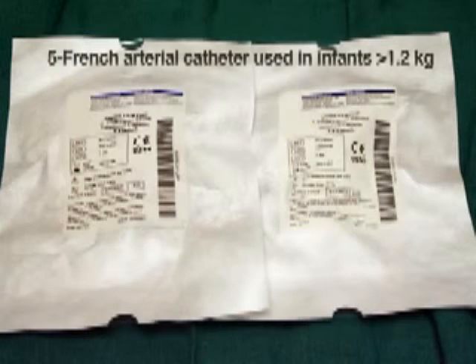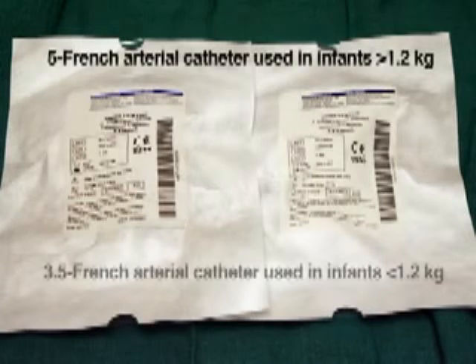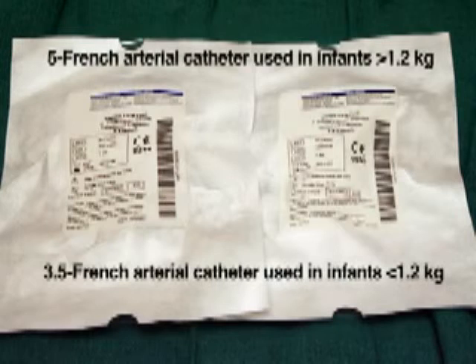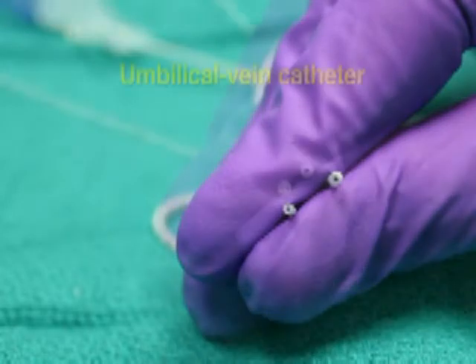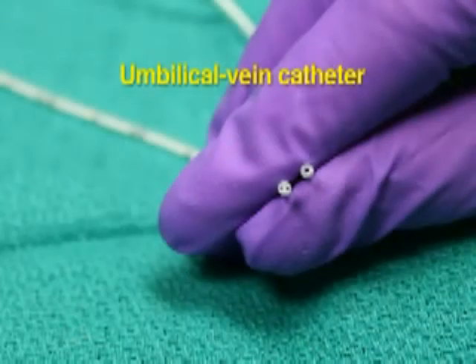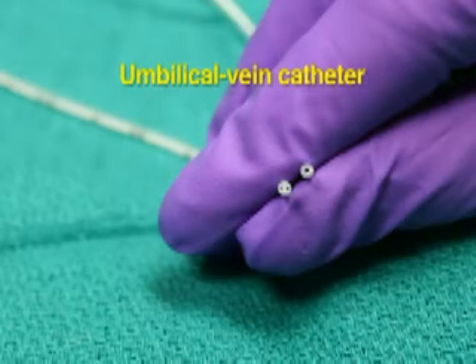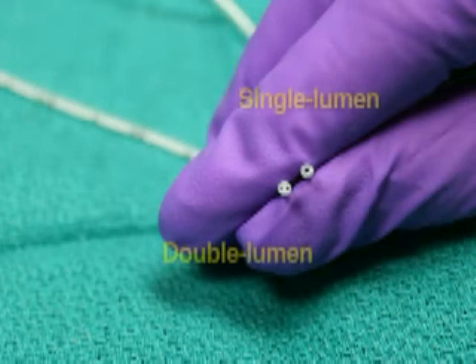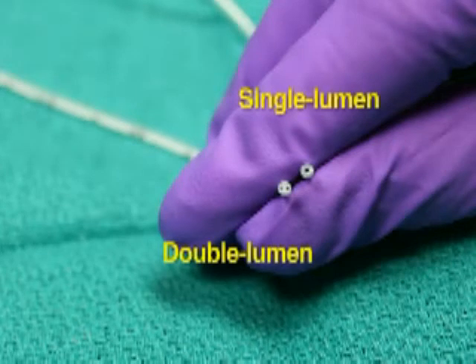There are numerous types of umbilical catheters from which to choose. A 5 French arterial catheter should be used in infants weighing more than 1.2 kilograms, and a 3.5 French arterial catheter for infants weighing less than 1.2 kilograms. Arterial catheters should have a single hole and be as non-thrombogenic as possible. The umbilical vein catheter should be 5 French for infants weighing less than 3.5 kilograms and 8 French for infants weighing more than 3.5 kilograms. Consider using a venous catheter with side holes for exchange transfusion; otherwise, venous catheters can be single or double lumen and should have one hole.